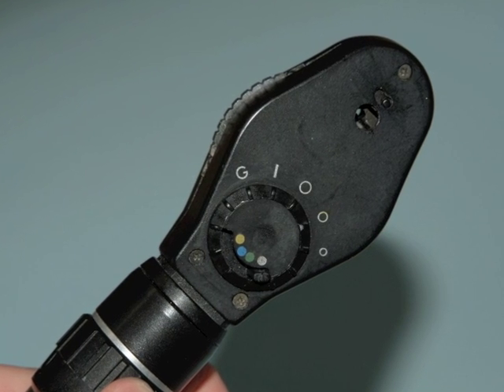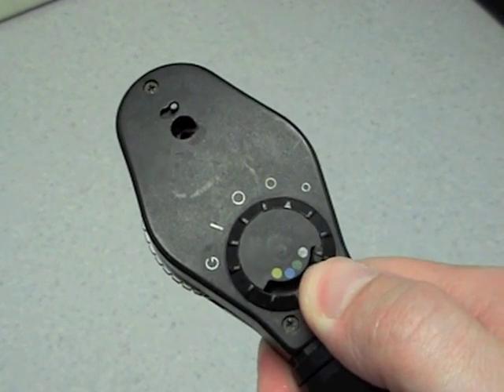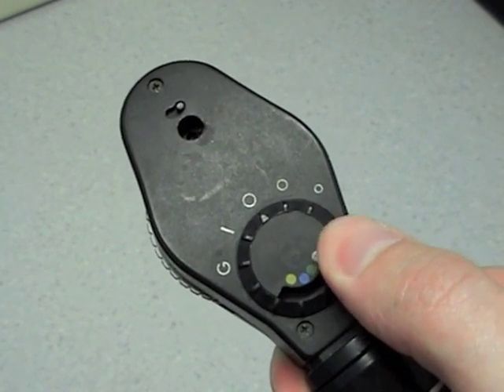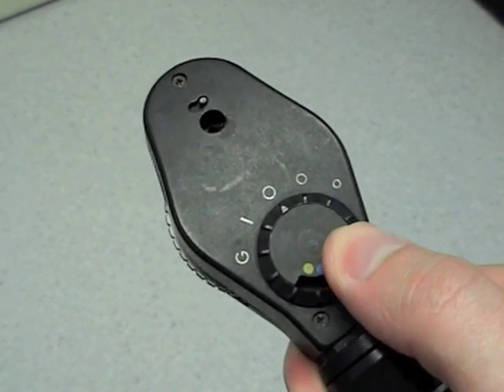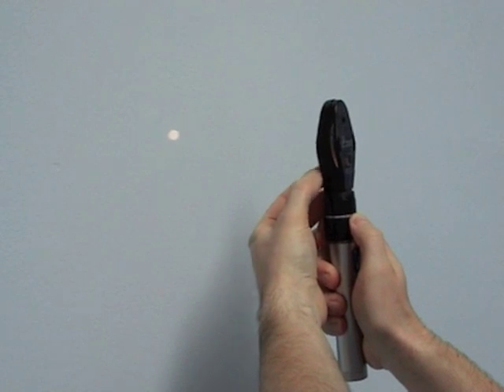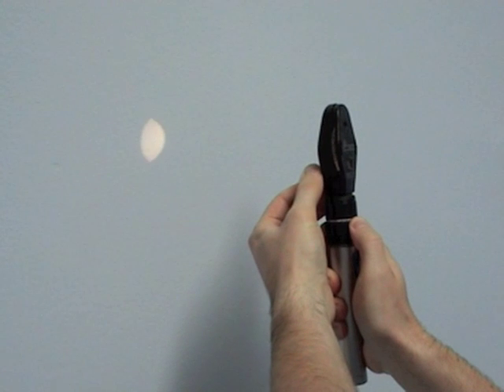The head contains a light source, lens bank, viewing aperture, and a series of filters. The filters can usually be selected using a dial on the front of the ophthalmoscope, such as the blue filter, which is used when examining the front of the eye with fluorescein dye.